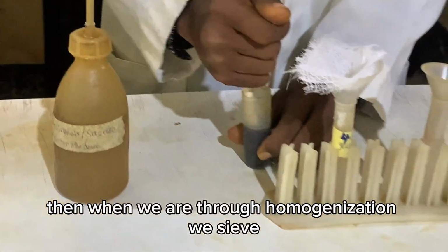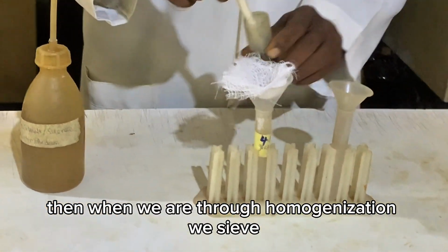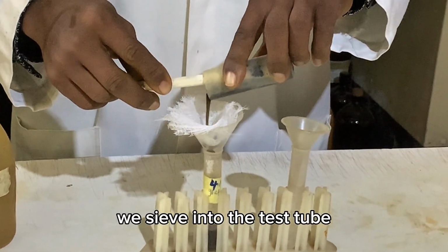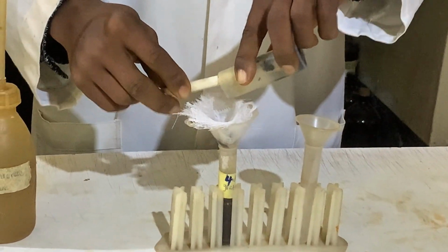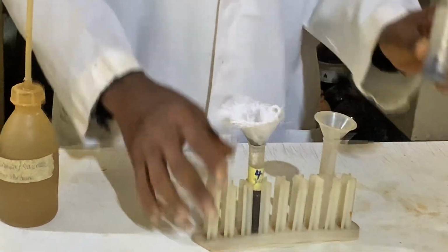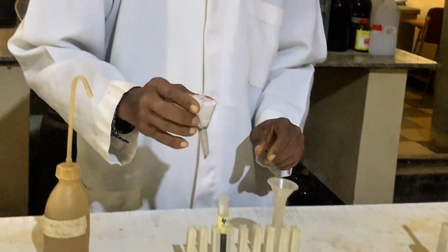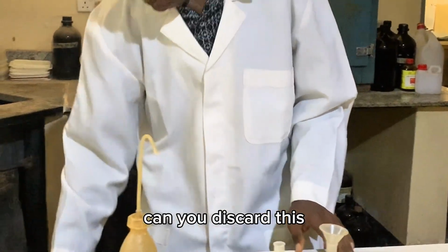Then when we are through with homogenization, we sieve into the test tube. Discard this.